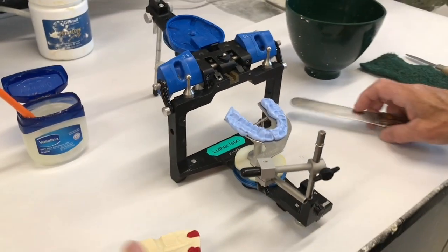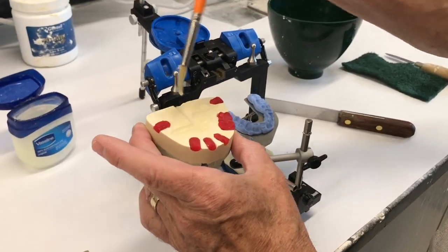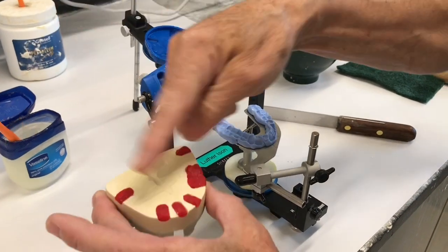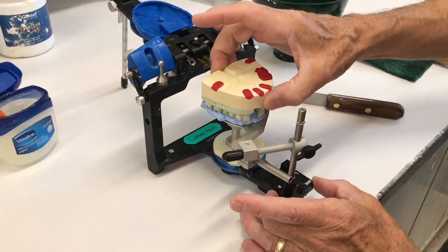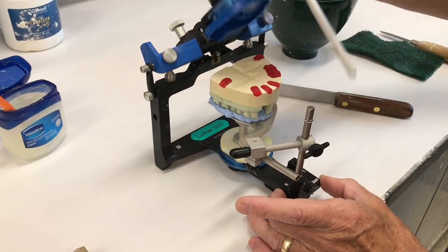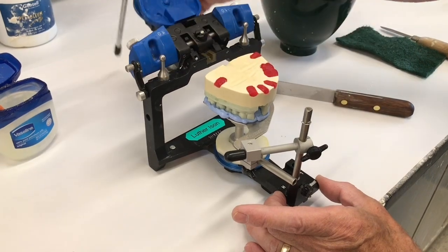And it goes up and down. So I blocked out where the pins are on this cast. I Vaseline the grooves. I soaked the rest of it for a minute or so just so it sticks while I want it to. With the Vaseline on the grooves, we can remove it if we need to after it's set. That fully seats down.